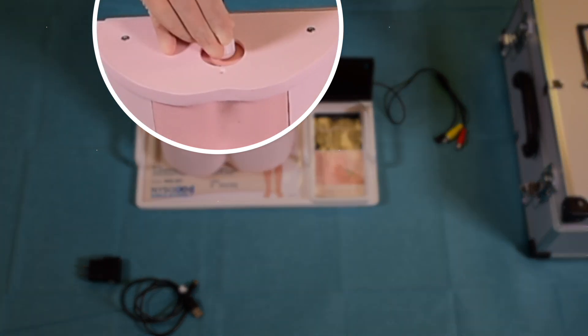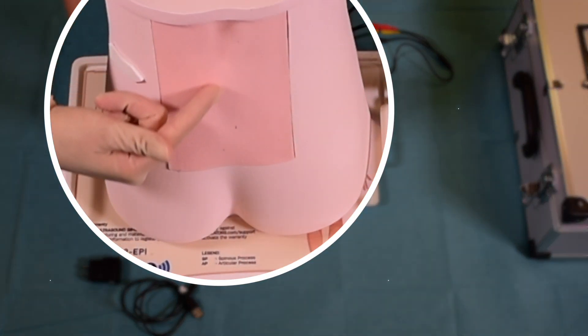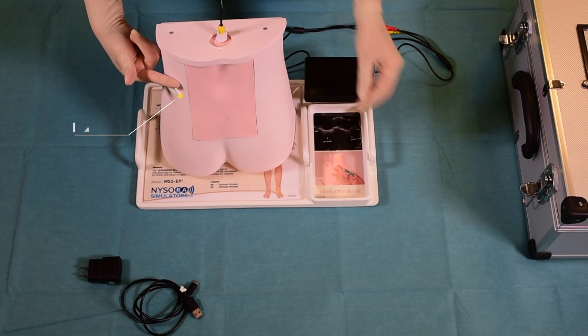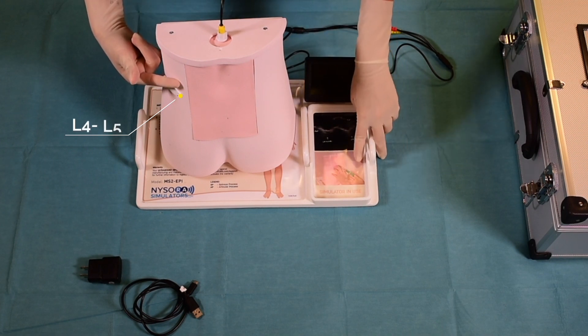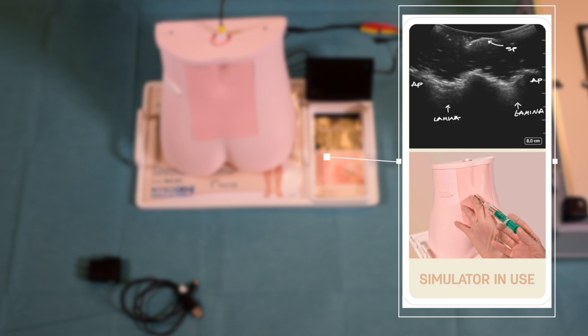To use the optional camera, insert it into the port on the top of the simulator. The epidural simulator features realistic surface anatomical landmarks. The fixed arrow on the left flank indicates the approximate location of the L4 and L5 interspace. The instructions on the tray illustrate the suggested needle placement and needle manipulation using loss of resistance during epidural anesthesia.